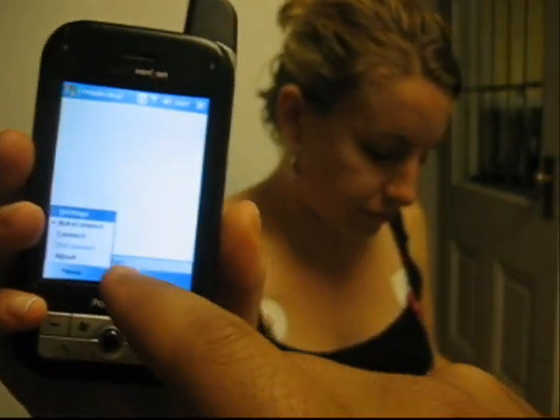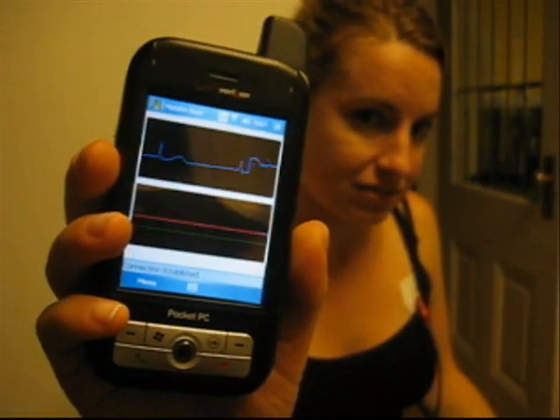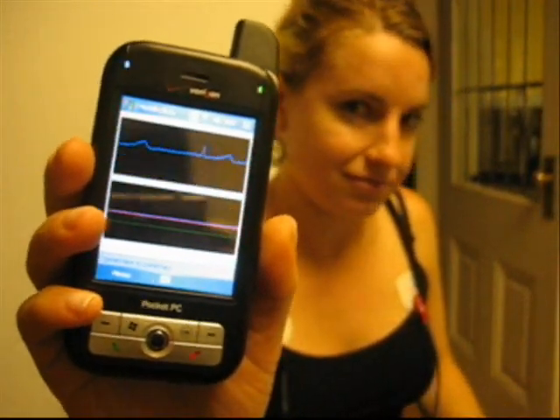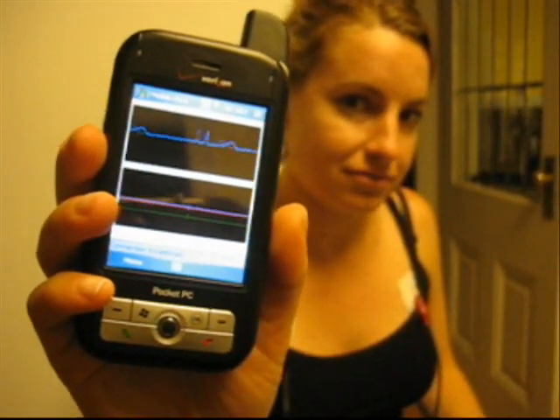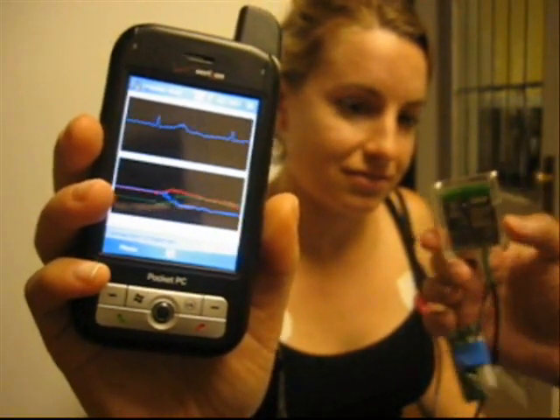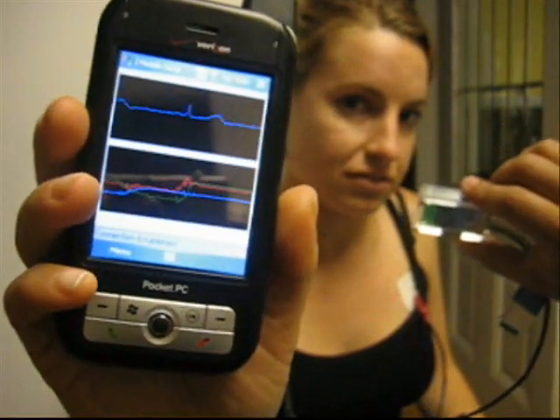After starting the application and selecting connect, you will notice the user's ECG being displayed on the top panel of the application. The waveform is dependent on the electrode locations, but convenient locations were chosen over ideal locations for the signal in this demonstration. In the bottom panel, you will see the accelerometer output and notice its variations as the health monitor is moved and shaken.